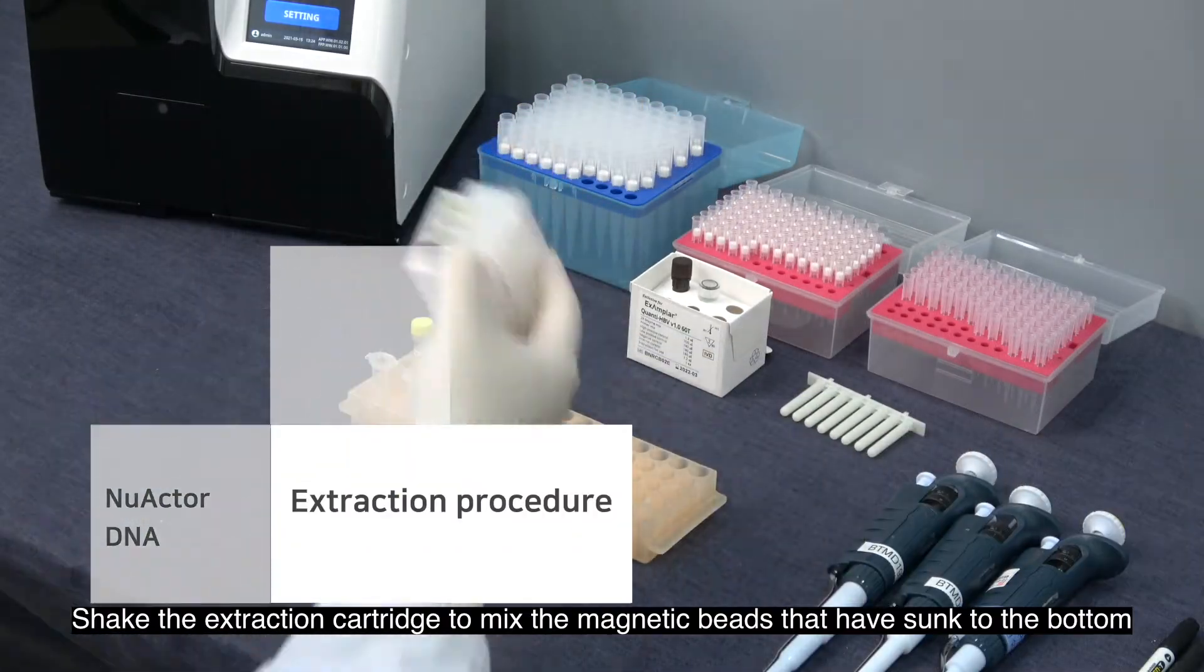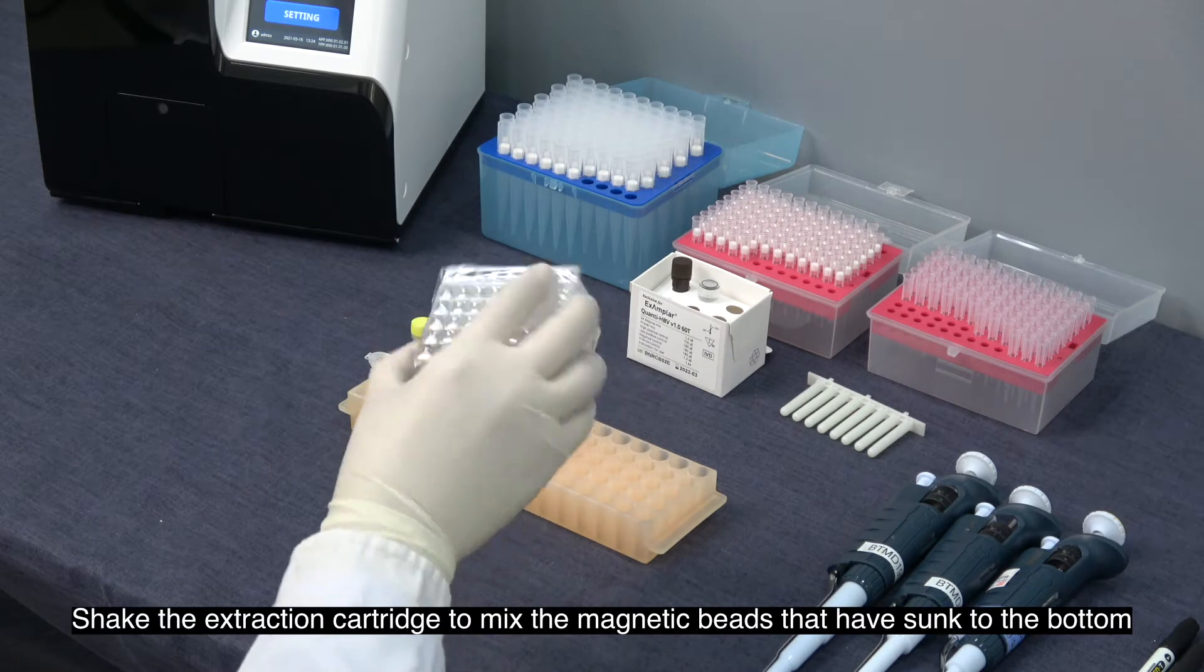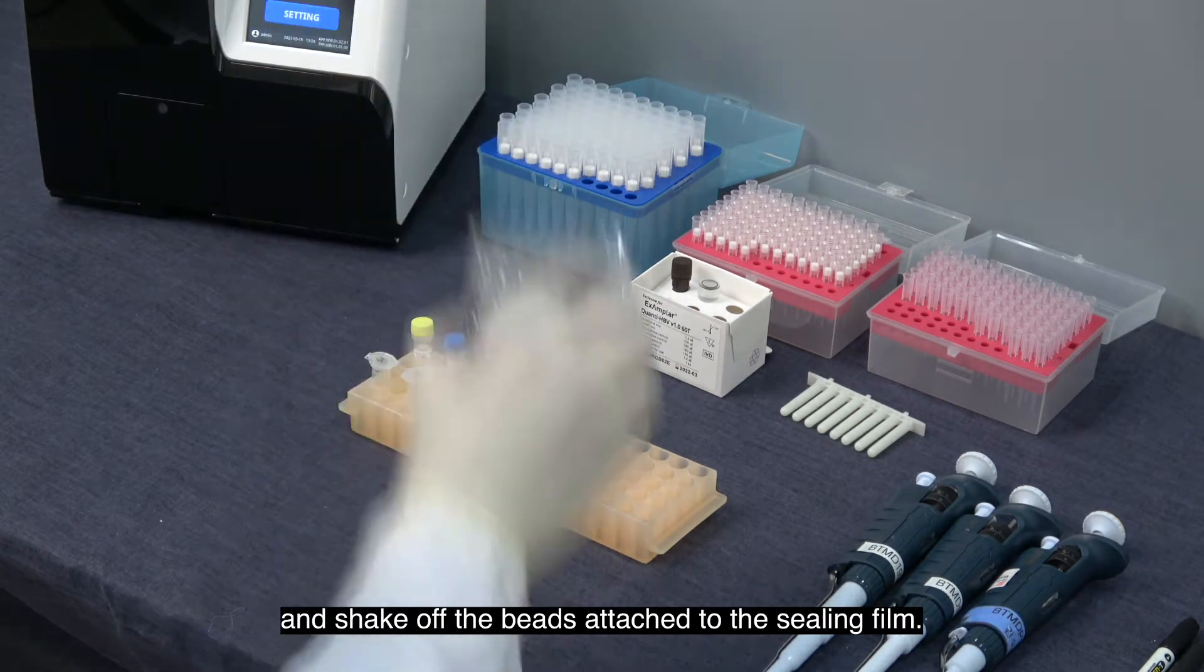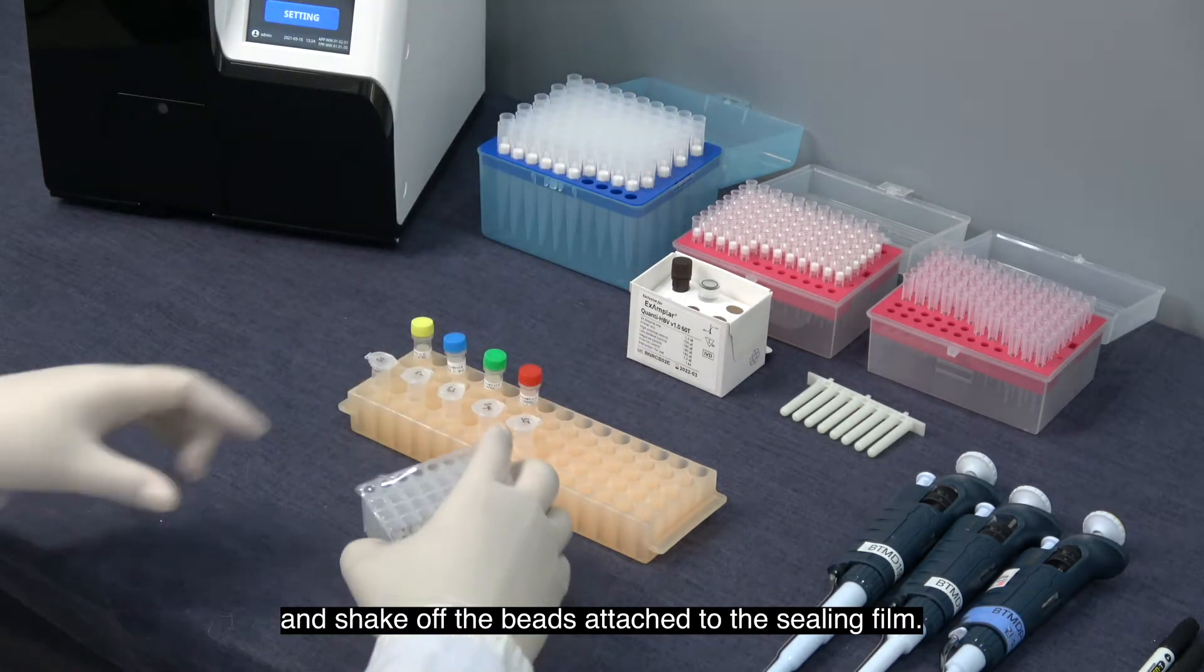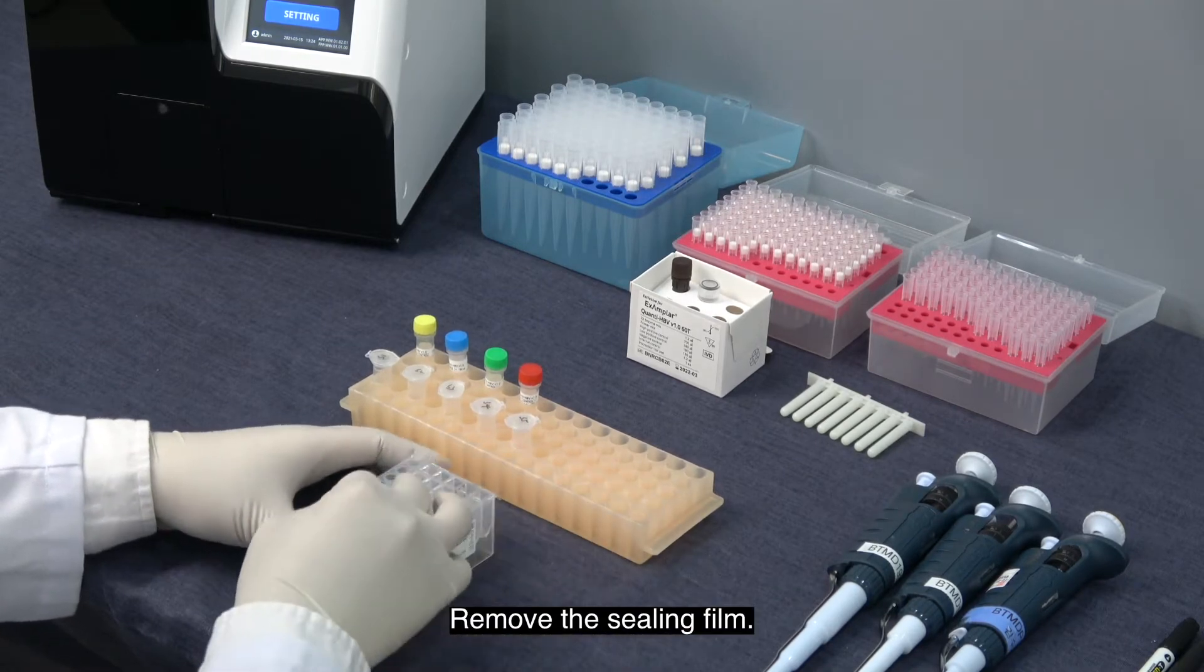Shake the extraction cartridge to mix the magnetic beads that have sunk to the bottom and shake off the beads attached to the sealing film. Remove the sealing film.